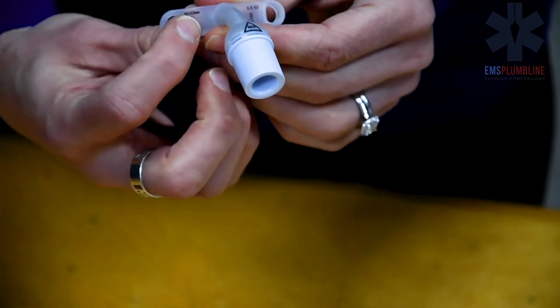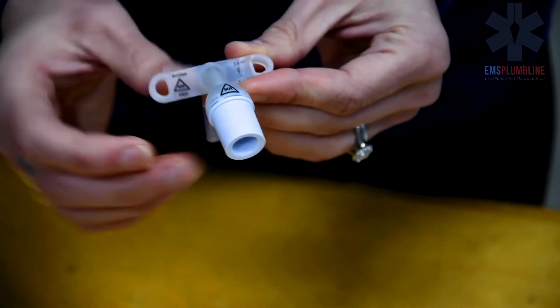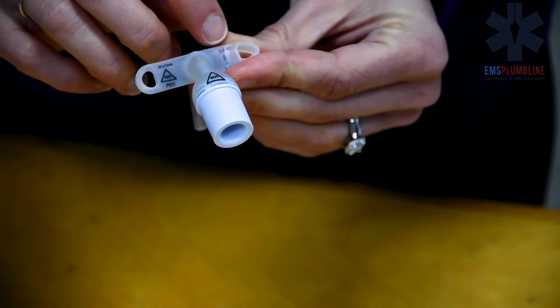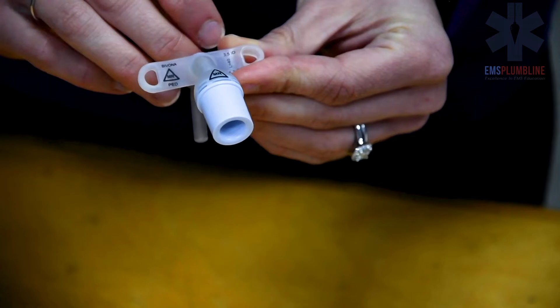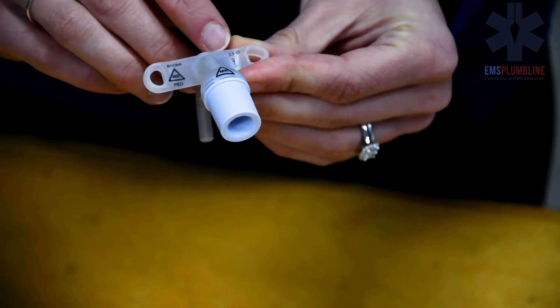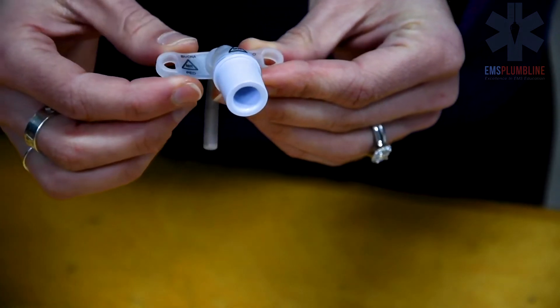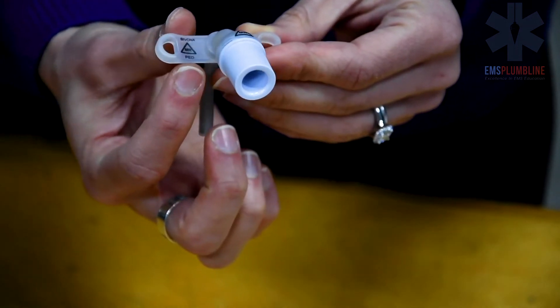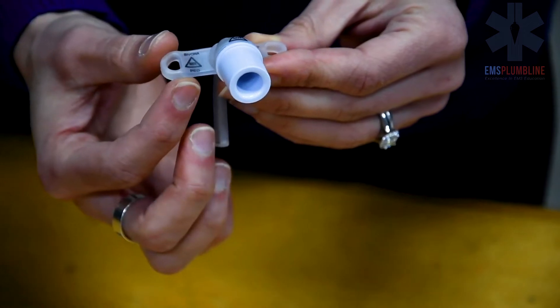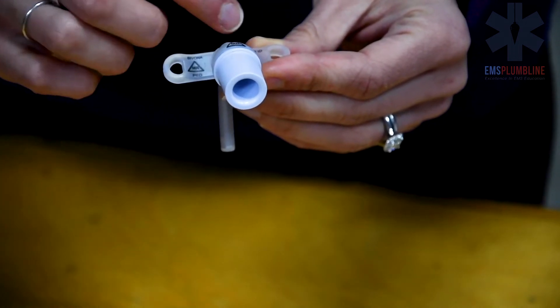When looking at a tracheostomy tube, information can be found on the flanges or the neck of the trach tube. In children, Neo or PED will indicate the size, as well as a number indicating the inner diameter of the tube.